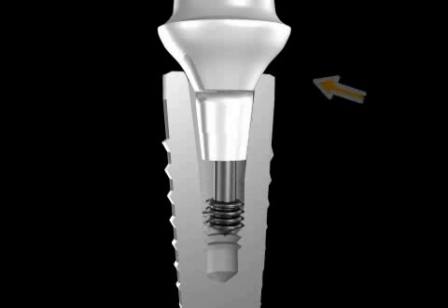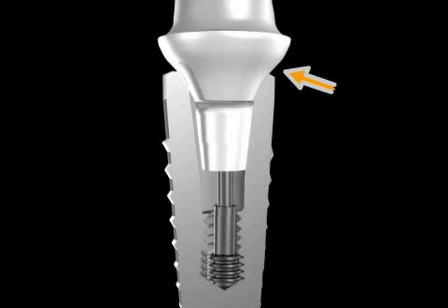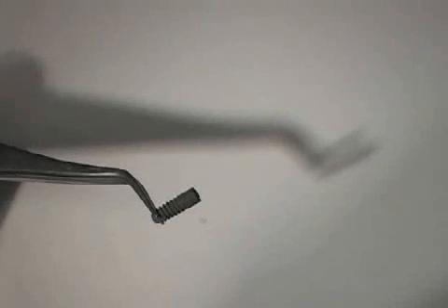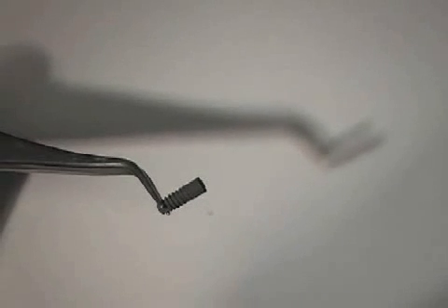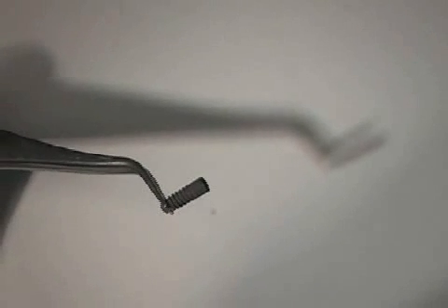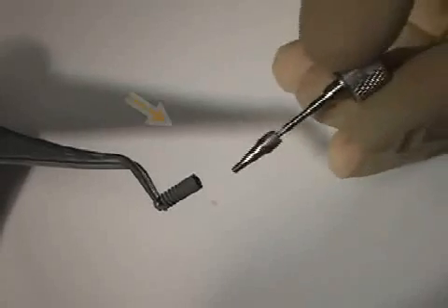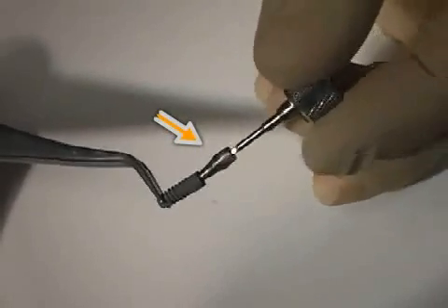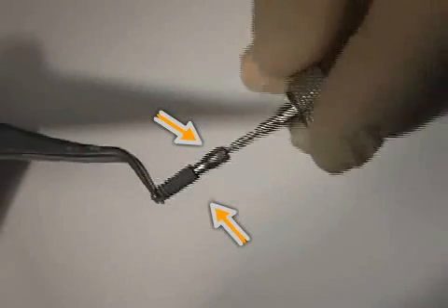The conical connection plays an important role in implantology. A conical connection describes one kind of implant abutment connection. For a better understanding, we will show you a titanium abutment being screwed onto an implant.